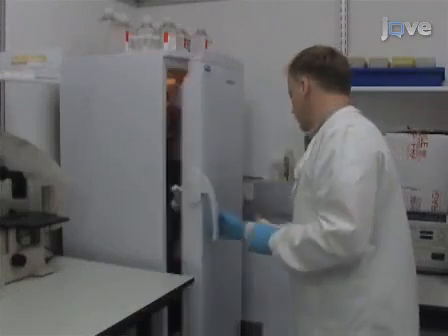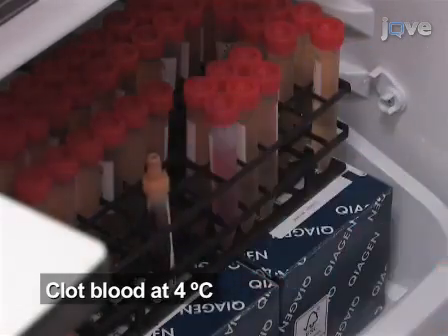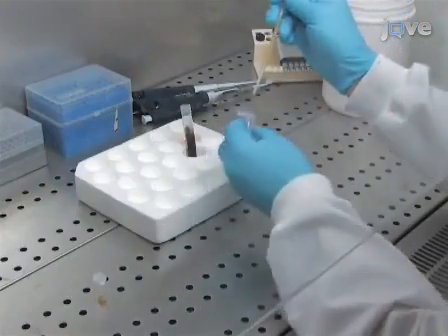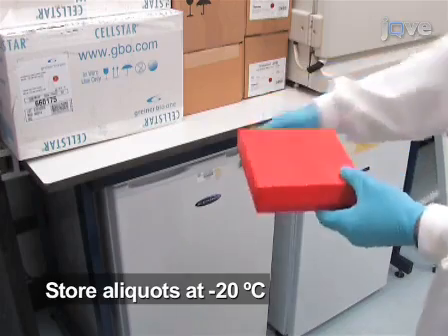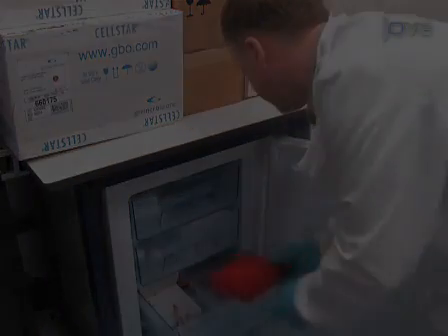To collect serum from untreated blood samples, allow blood to clot at 4 degrees Celsius. Serum and bronchoalveolar lavage, or BAL fluids, should be stored as aliquots at -20 degrees Celsius prior to use. Storage as aliquots limits the potential for degradation of the target antigen.